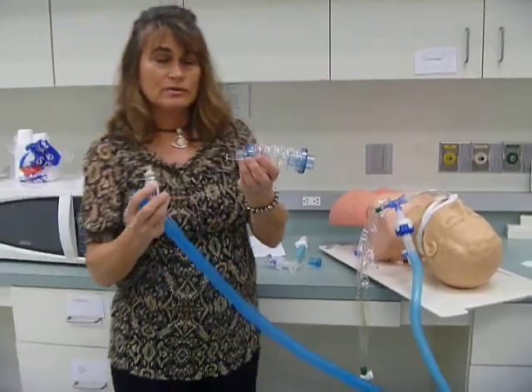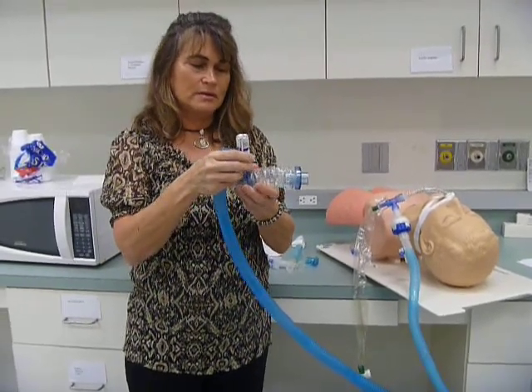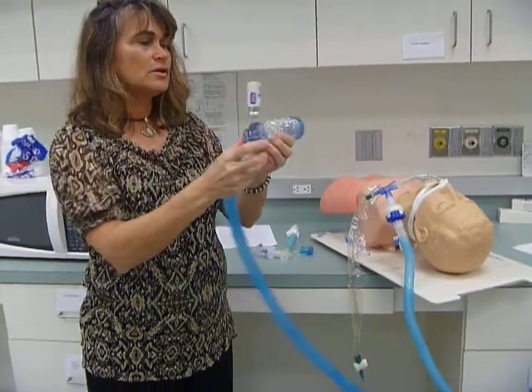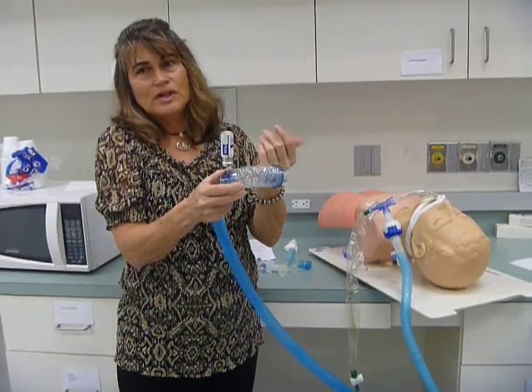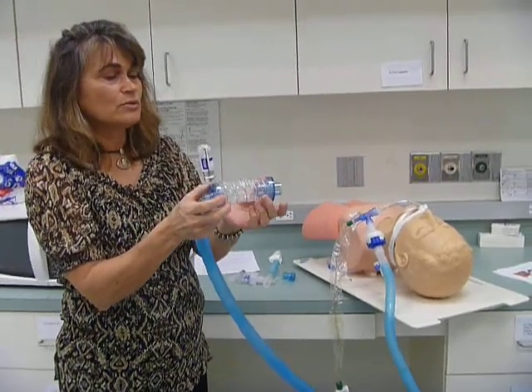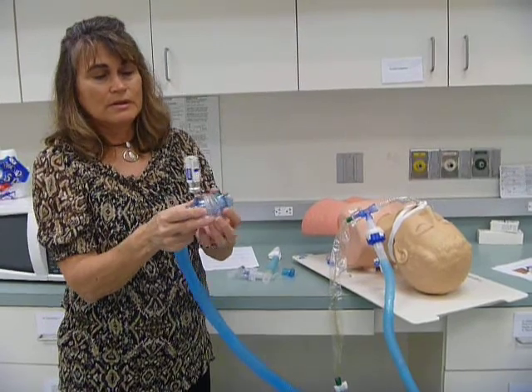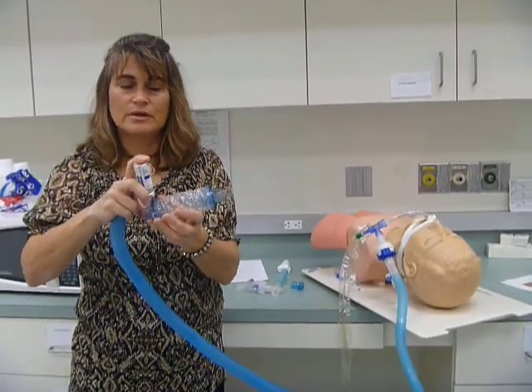This is a spacer. So when you put the canister on and you press down, it's going to deliver the medication into the spacer. And this gives it a chance for all the particles to become suspended in the air. So when the patient inhales, the particles will end up in their lungs. Do we still have to push it down? Yeah, you still have to press it down.